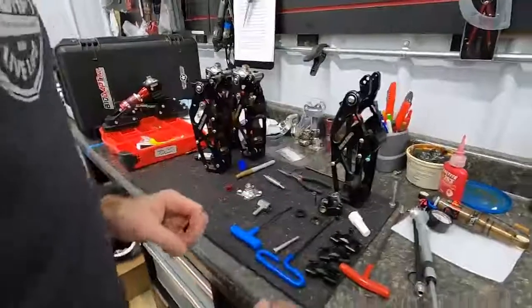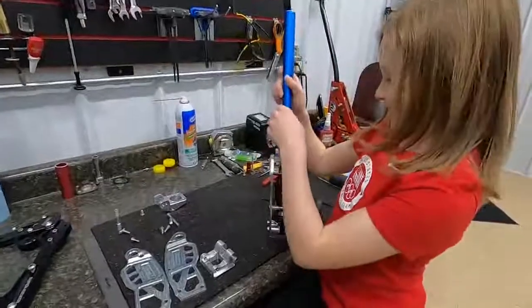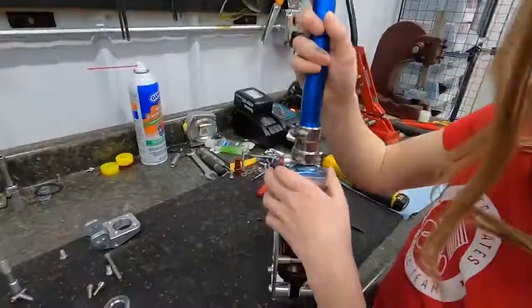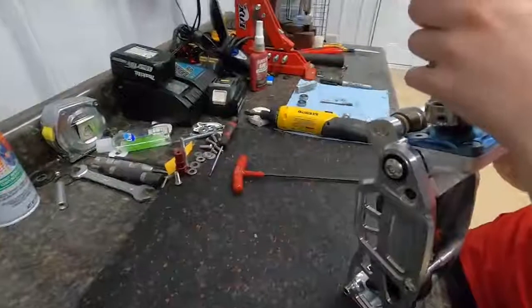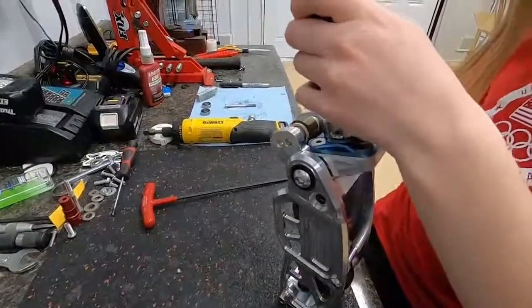She's working on one of our prototypes — one of the brand new mini moto knees. Do you want to see how I put this on? You rotate it just a little bit — there you go. That piece there is called a pylon.